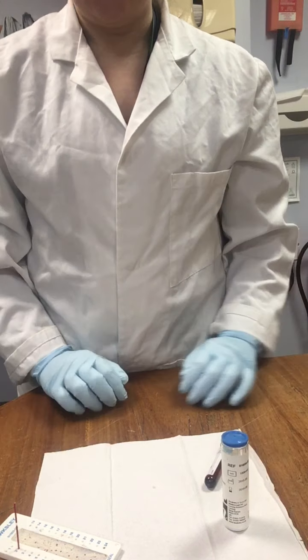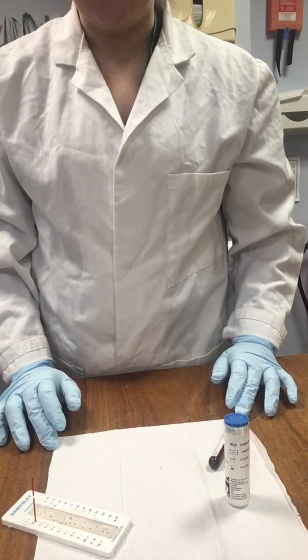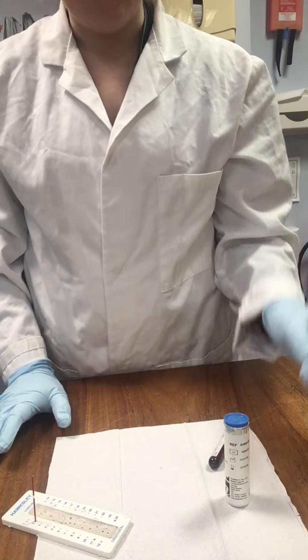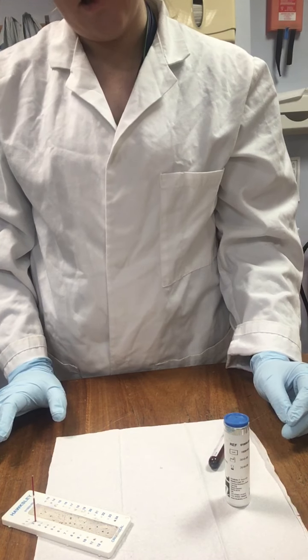So, what we need for this task—I've just popped some paper towel on there, just to create a clean working environment. But for this particular test, we just need our hematocrits.